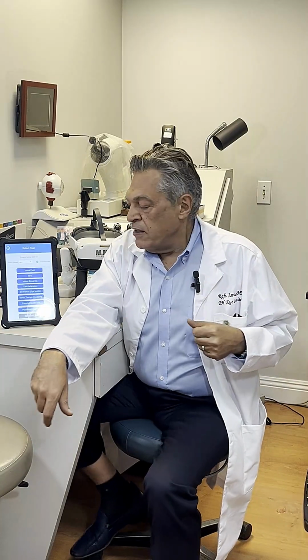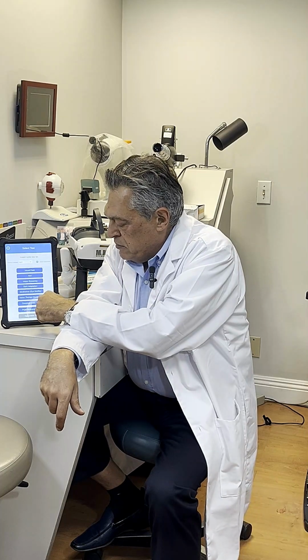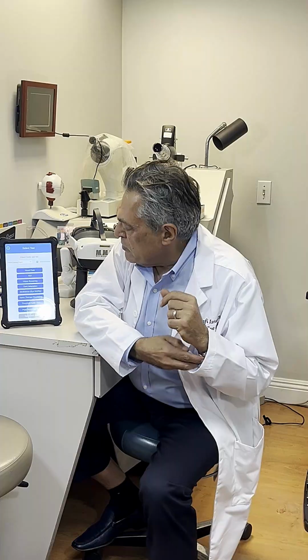Is the visual pathway working properly? Is there any damage to the optic nerve that you haven't seen before? Because a lot of times when the ophthalmologist comes to visit the patient, they are already dilated, and it's very hard to elicit any APD effect at that point. So I use the pupillary response test for all the patients that undergo premium intraocular lens, not only to measure their pupillary size, but also to measure their pupillary response.